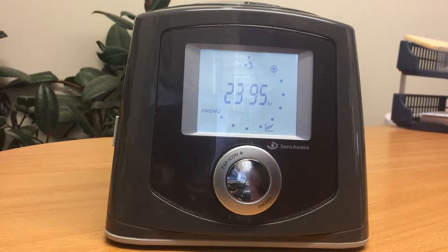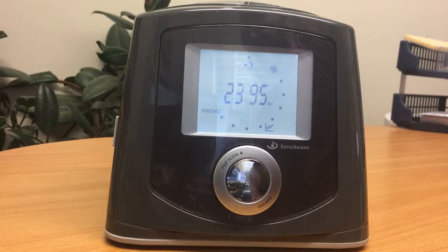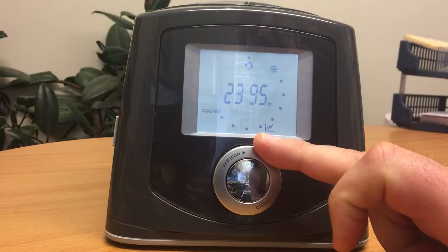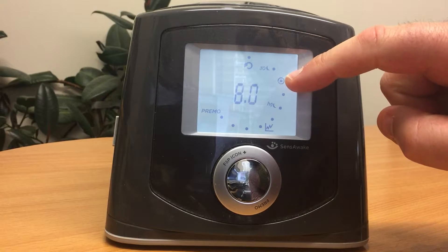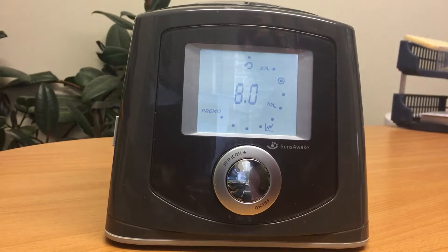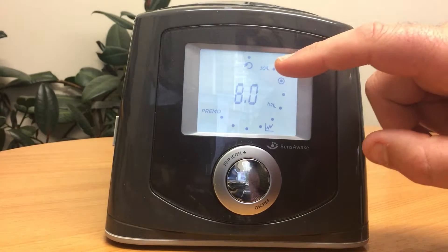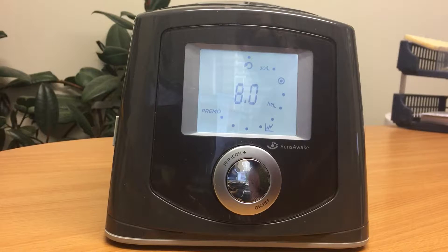The first figure shows the number of hours of data stored. If you turn the dial, you can see the circle move to the next dot, and the number on screen is the average hours of use per night. The little 30 and moon symbol means that's an average over 30 nights.